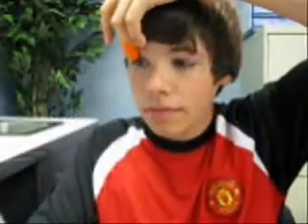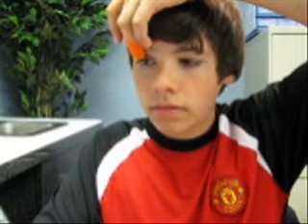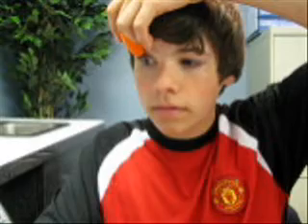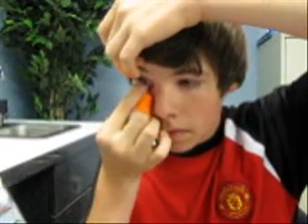Taking the contact lenses out is just as easy. The first step is to put the Eyelid Immobilizer right above the lashes on the upper eyelid and pull the eyelid out of the way securely. Take the lower immobilizer, put it below the eyelashes, pull your lid down, and gently slide the contact down and pinch it right off.